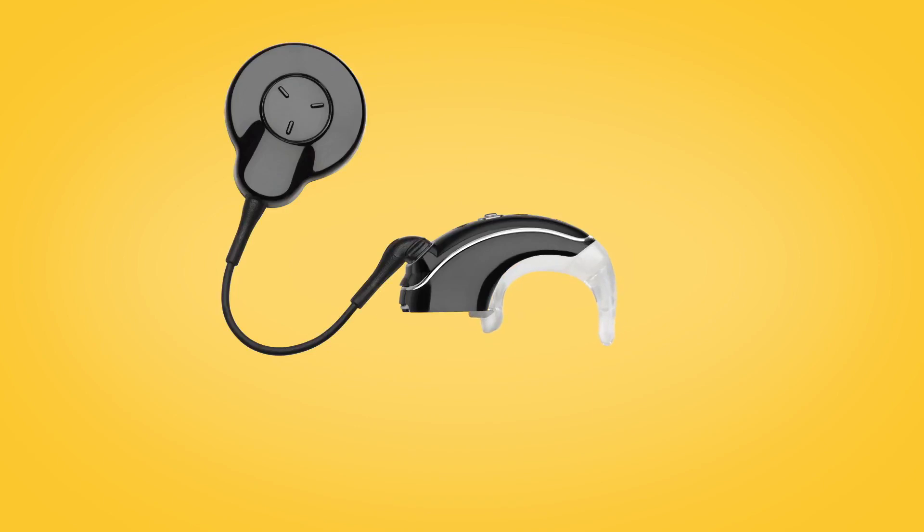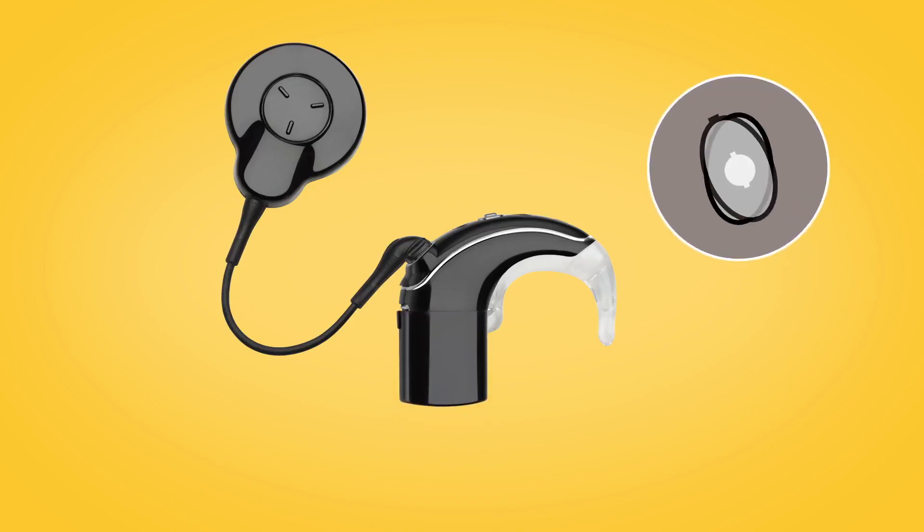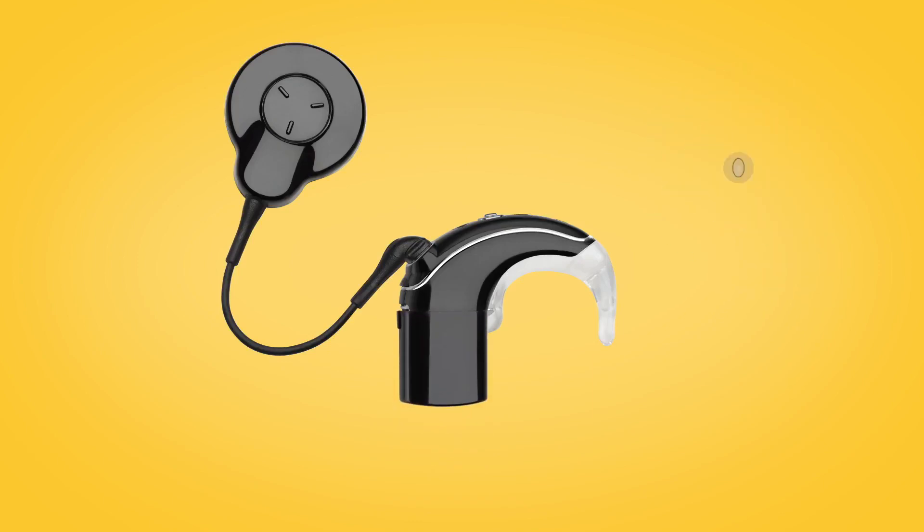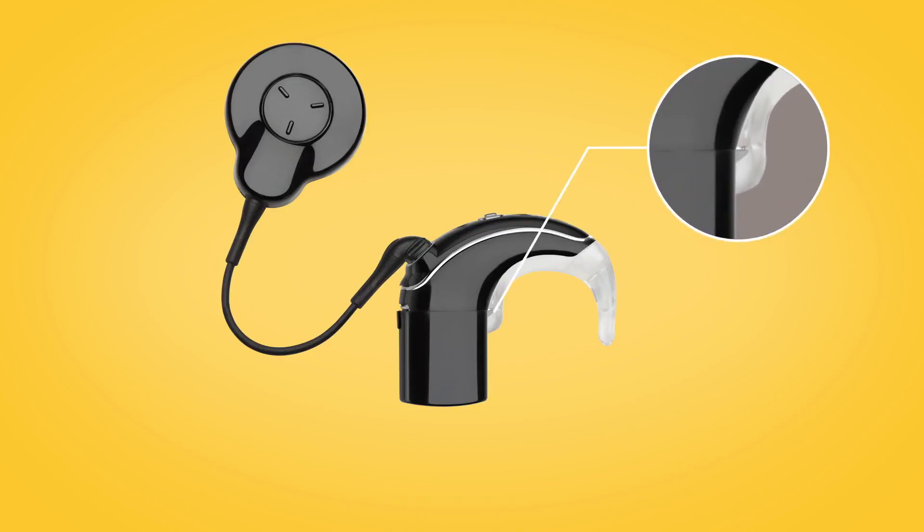Then simply reattach the battery module as you normally would, making sure the metal hook lays flat to allow the battery to clip on.